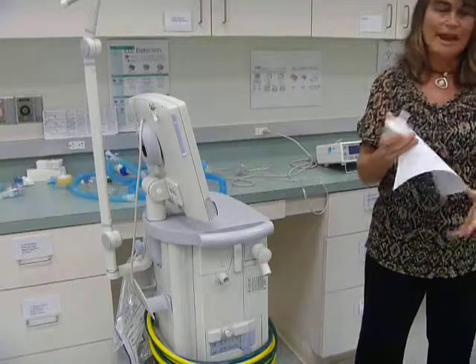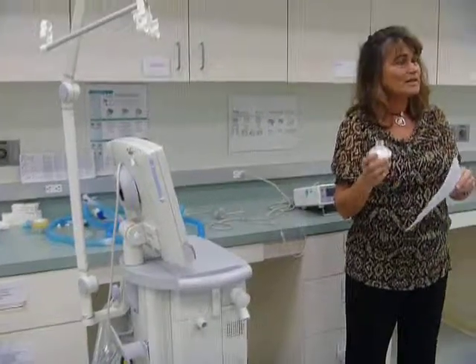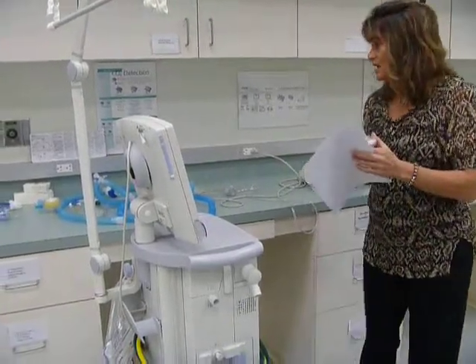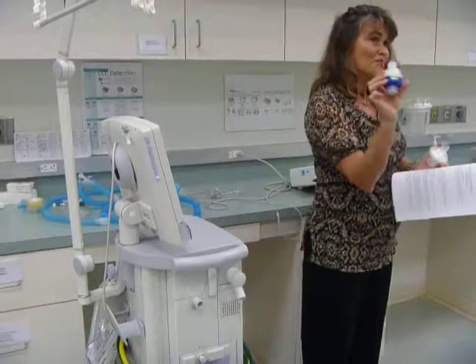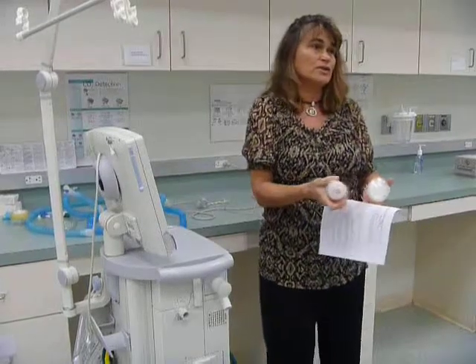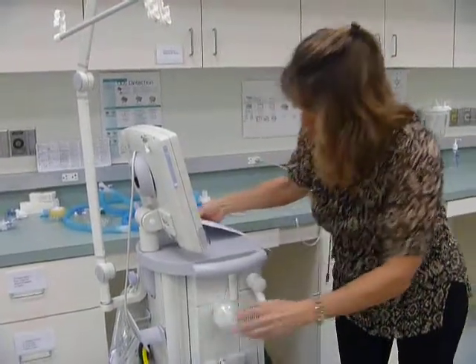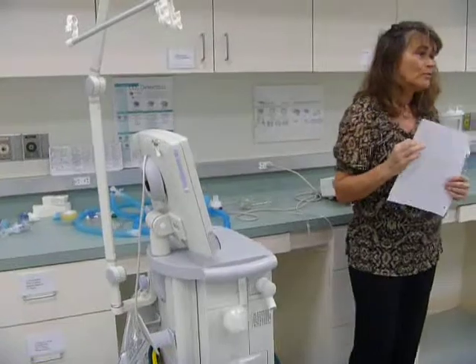how do you know when you take it out of the package if it's a filter or if it's a heat and moisture exchanger? Sometimes the only way to tell is by reading the package insert. It'll say breathing filter, and it'll tell you how efficient it is on the package insert. Sometimes when you're looking at a heat and moisture exchanger, it's kind of obvious because it says HME, but they're not all that obvious. So when you're looking at it, which one's a filter and which one's a heat and moisture exchanger? Again, it's the package insert that will give you the clue. All right, so the air coming through the machine and going to the patient, we want to make sure it's clean air. So that's why we're going to put a filter on.